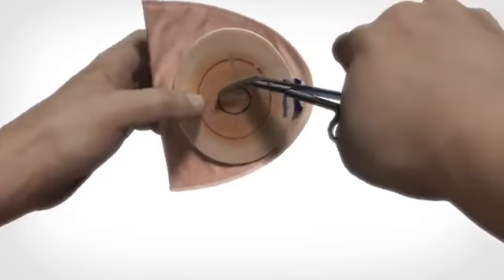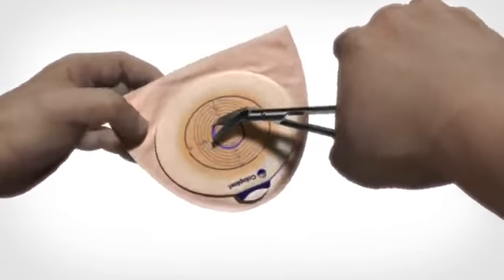When you remove the protective film, you can save it as a guide for the next time you prepare an adhesive.